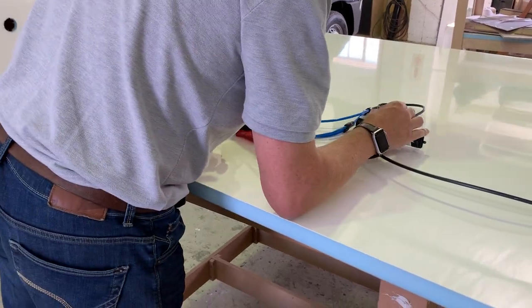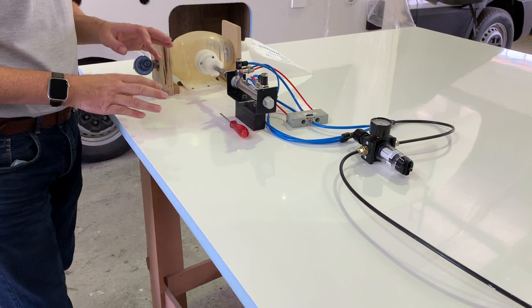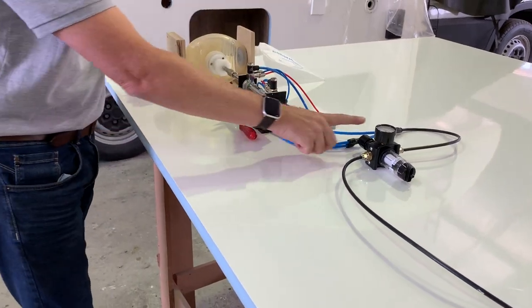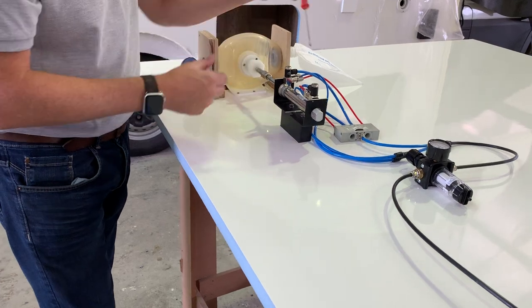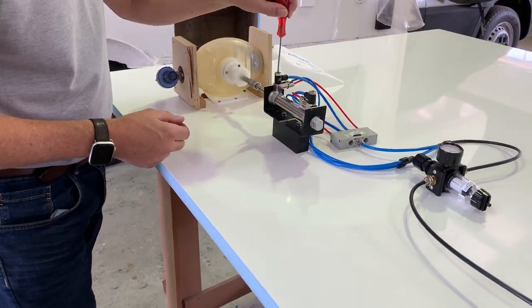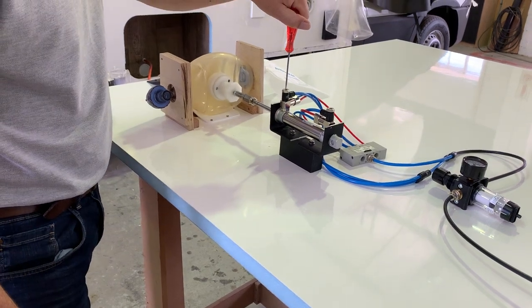It is set at the moment at about one and a half bars. The system will work at half a bar, it will work at two, three bars, but that's obviously regulated by that. And then with a screwdriver at the moment, we can adjust the speed of the stroke. You see how much faster that goes now. We can even go faster.